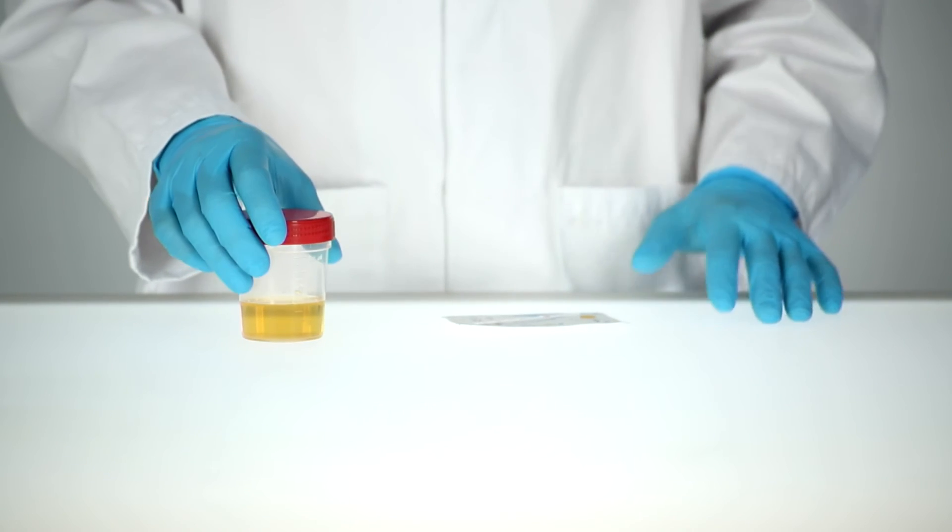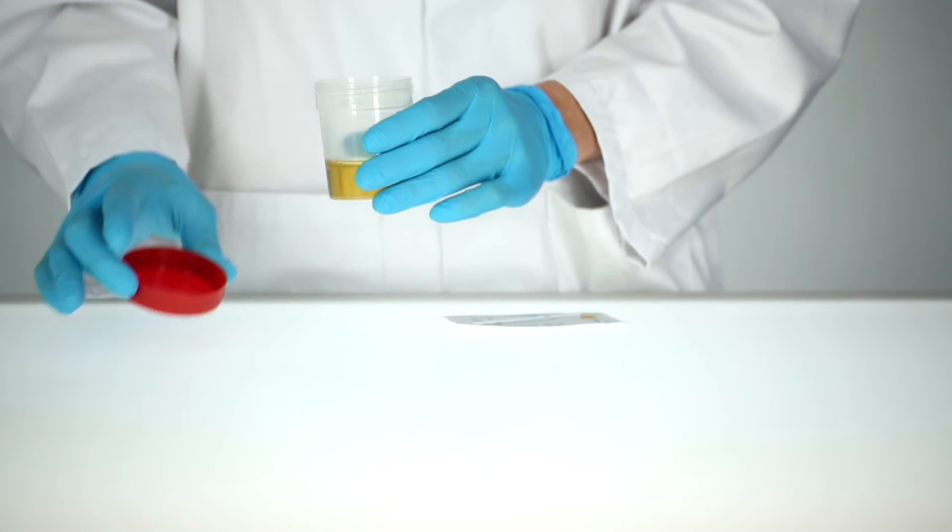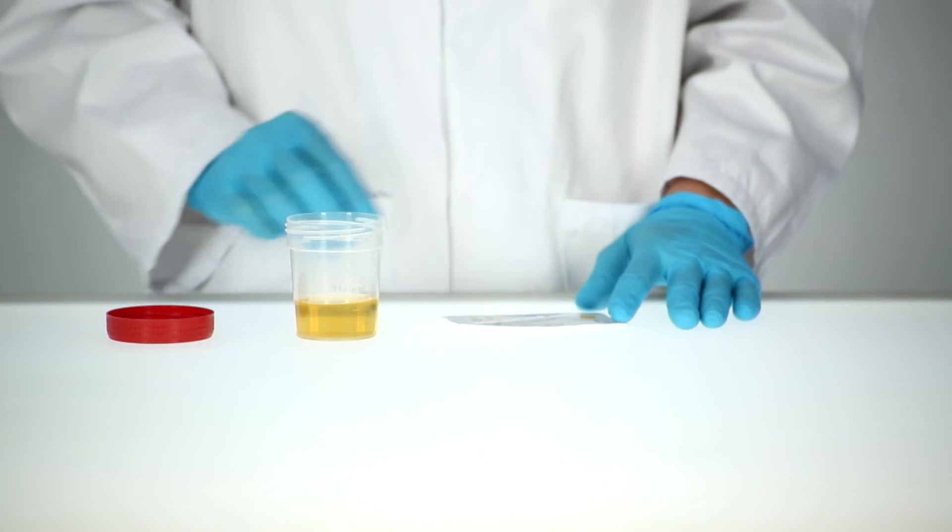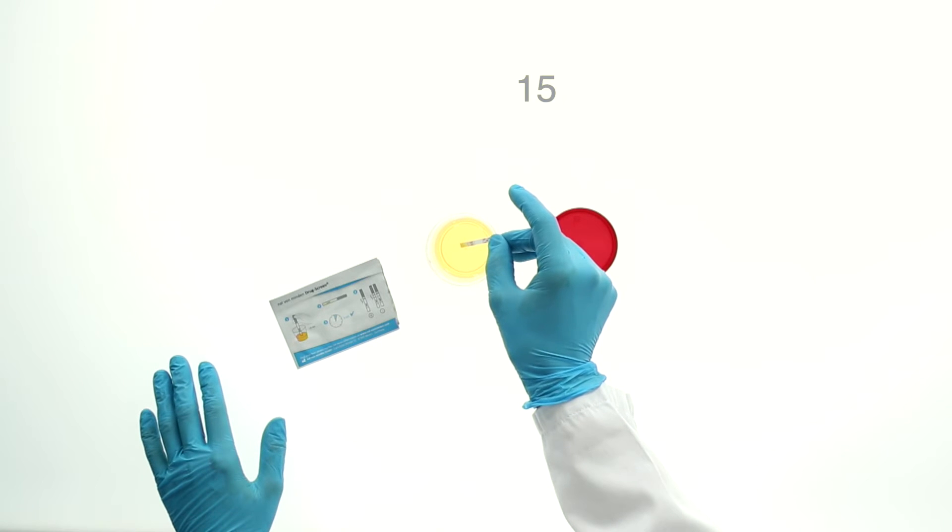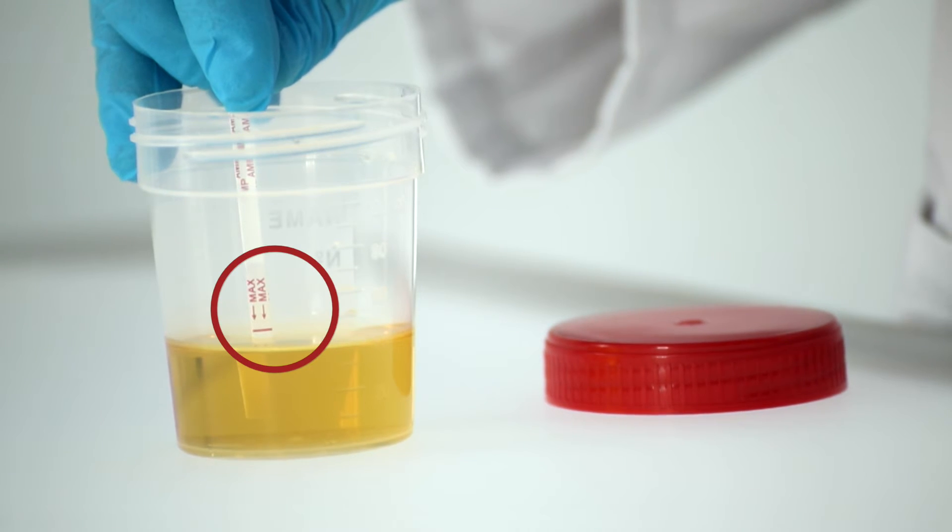The urine specimen must be collected into a clean and dry sample container. Immerse the test in the urine sample for 15 to 30 seconds. The liquid must not exceed the max mark.